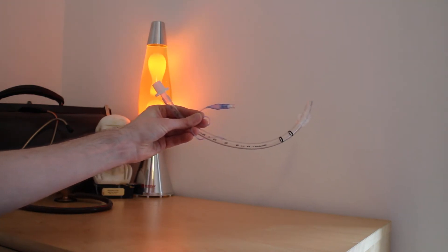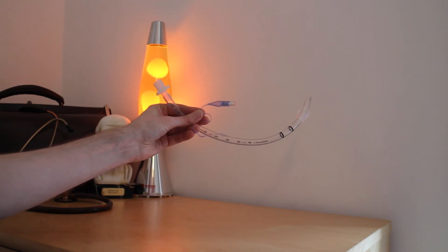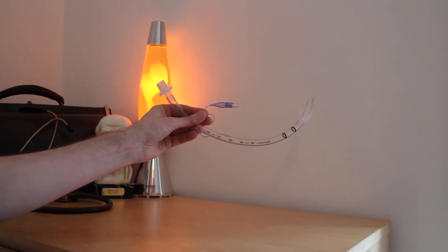Indications for the use of this tube are emergency and elective. Emergency situations include cardiac arrest or respiratory arrest, patients in whom we need to take over their airway definitively.